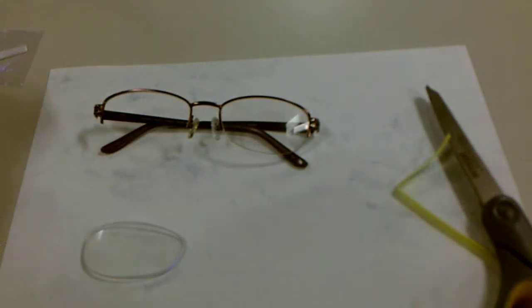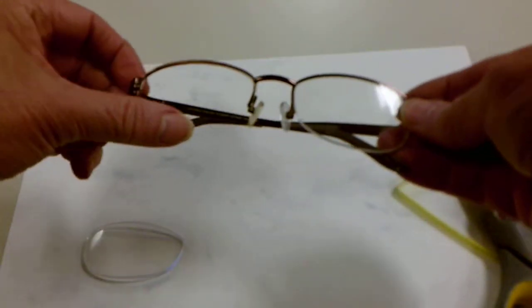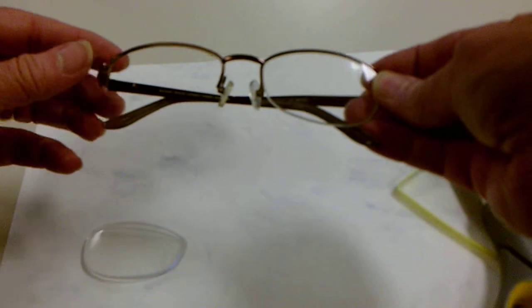How to restring a grooved rimless lens. So we're missing our string here. It's very easy to replace.